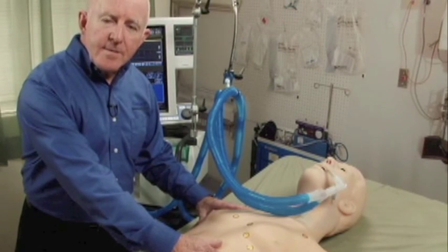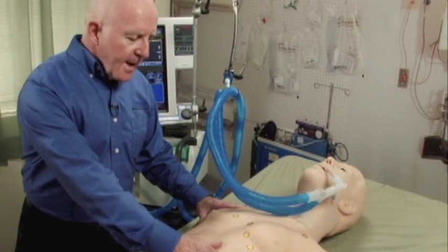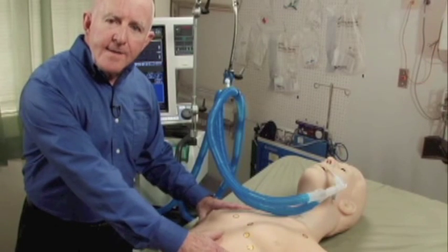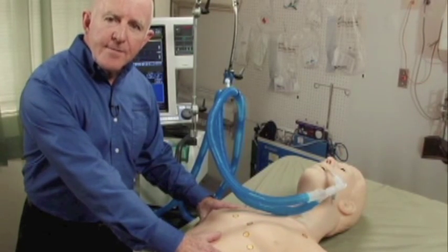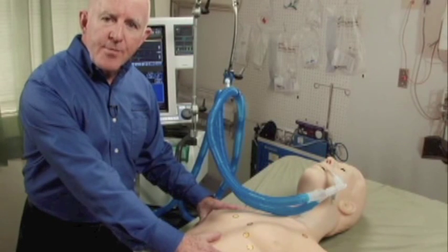Also, on the unilateral setting, HAL's chest rise is delayed, making for excellent observation of airway resistance problems.